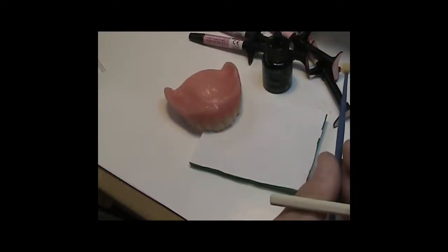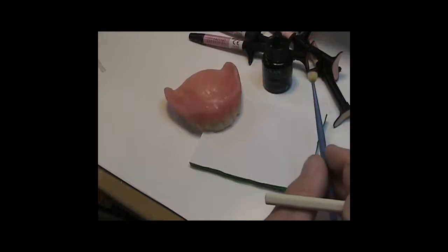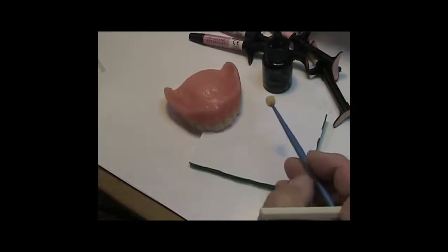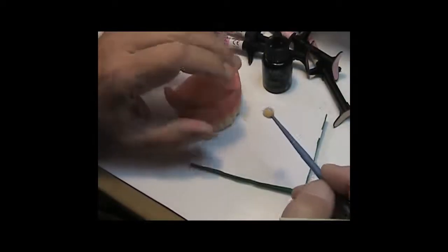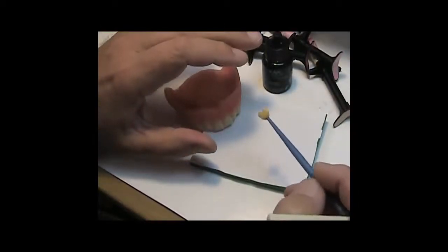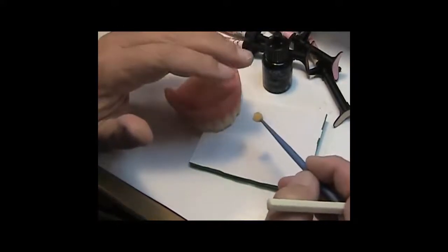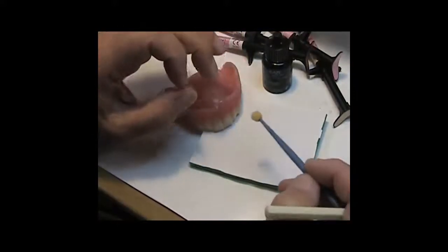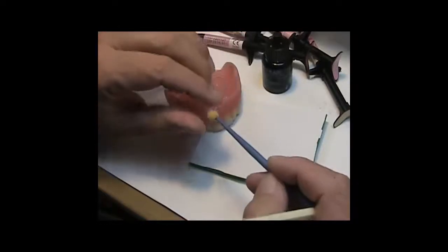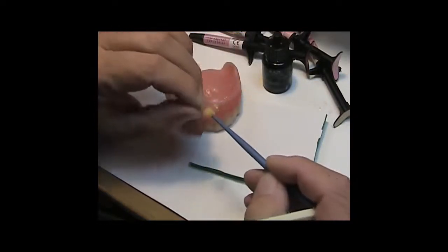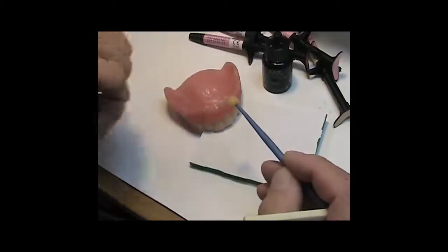Which is positive in nature and not negative. And what I mean by that is that when we do wax-ups, the old technique was to take a brush and you stipple the surface of the wax, and then when you process it, you have this bumpy surface because the bristles have penetrated the wax surface at some degree and have created a texture.